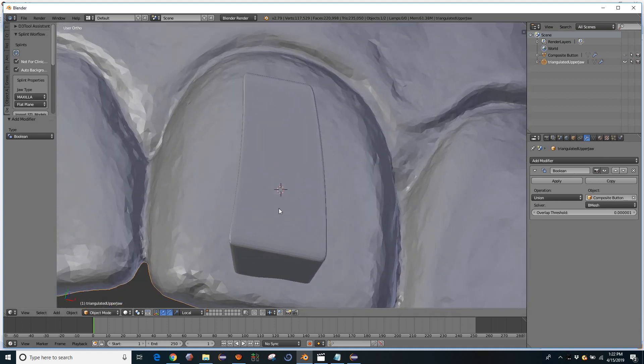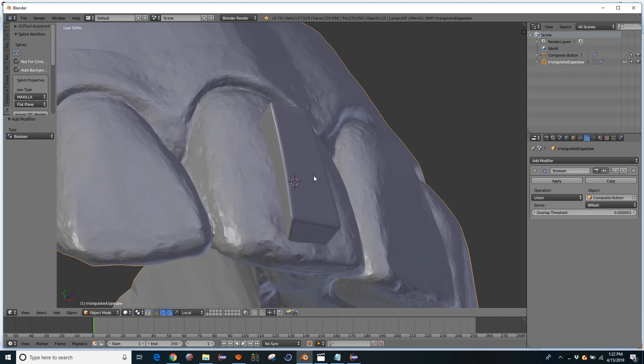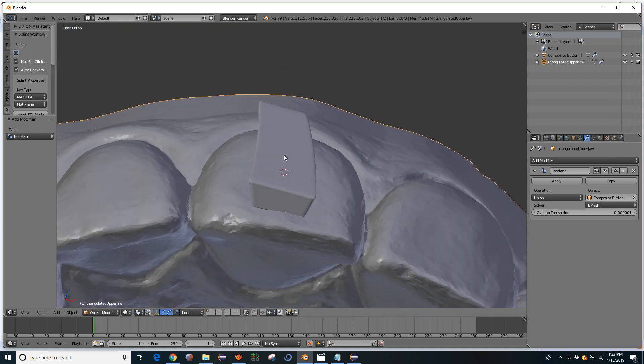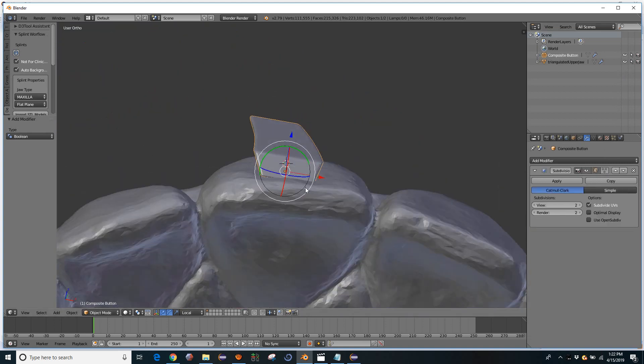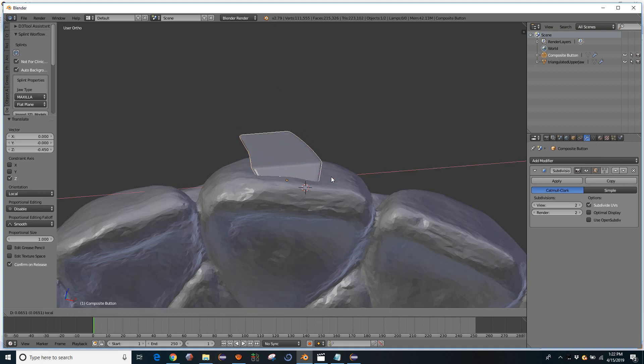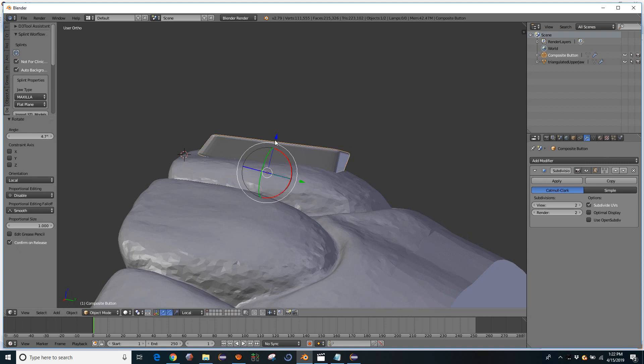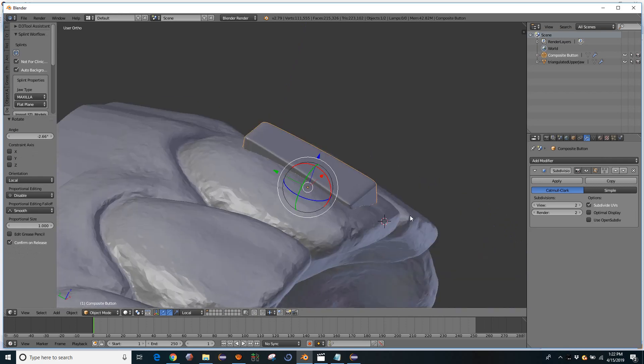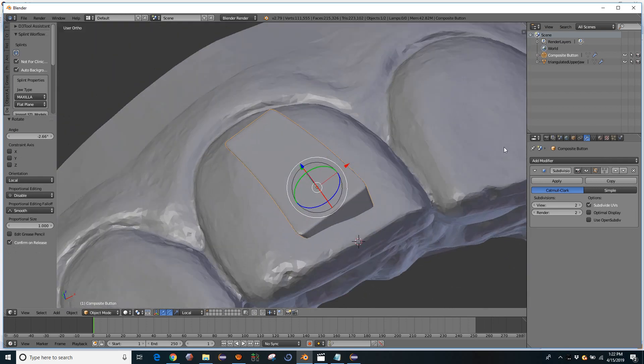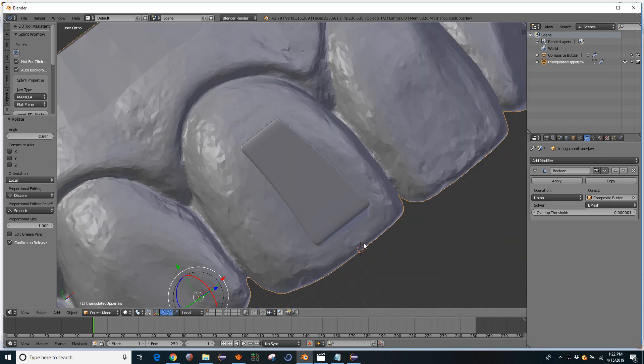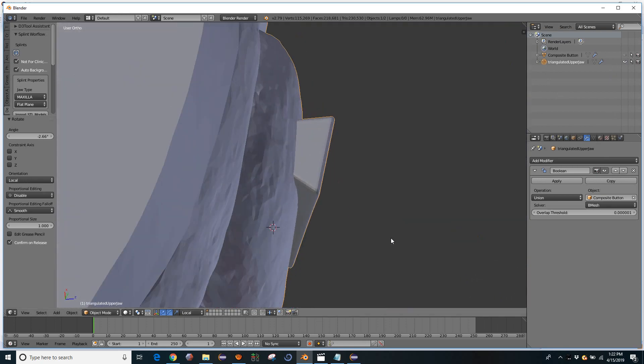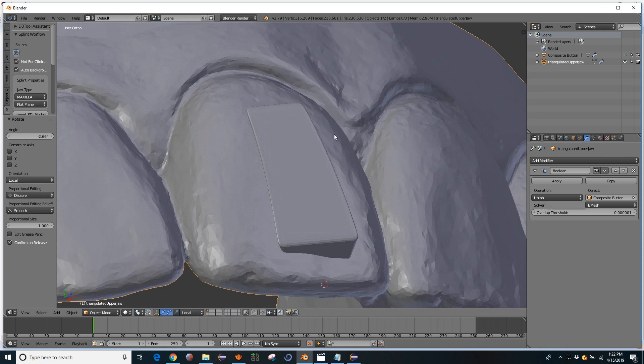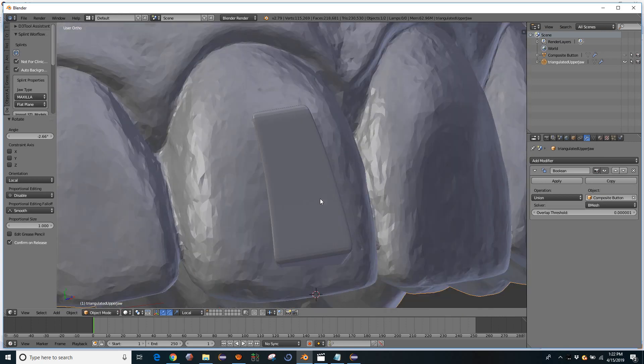Okay, and then if you want to keep that, if it worked, like if it's successful, great. If it's not, you can turn off this modifier temporarily. Move this around. Not that this makes any sense, but modify how you have it positioned. Come back to the upper jaw and turn the modifier back on. And so in that way, that allows you to preview the result, go back and make changes, and then come back and confirm.